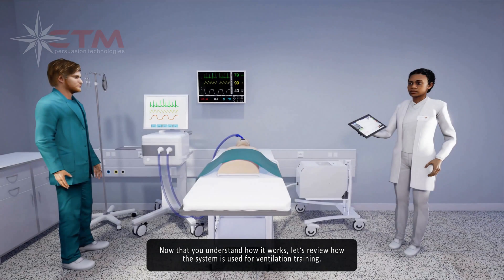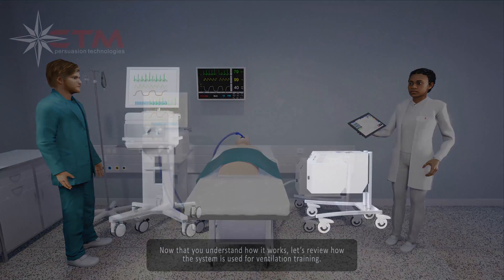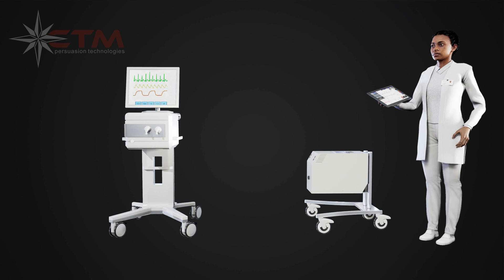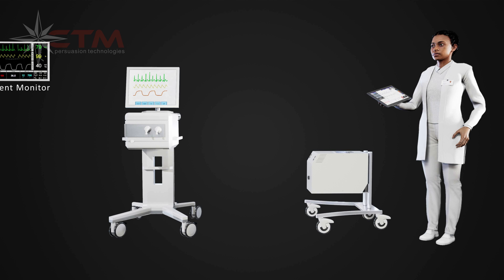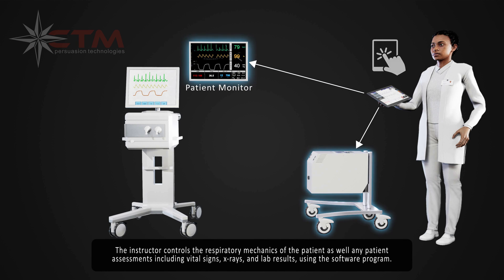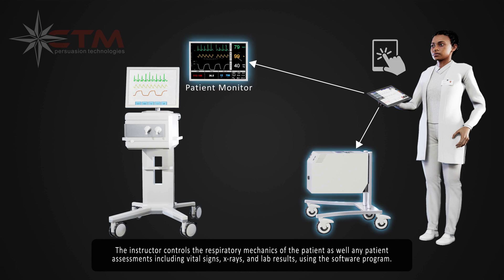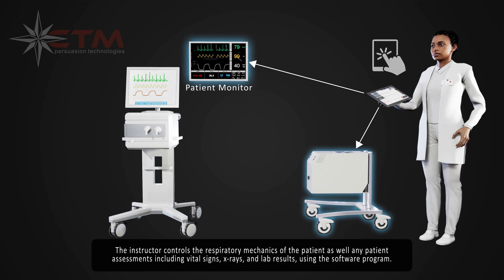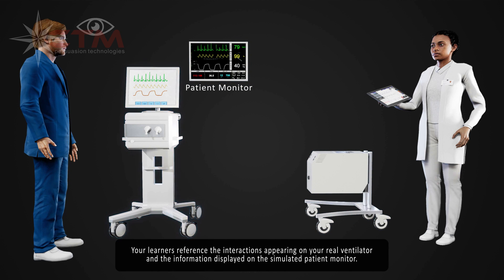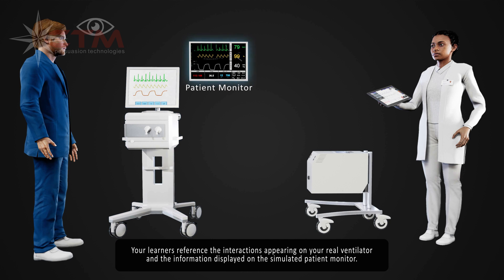Now that you understand how it works, let's review how the system is used for ventilation training. The instructor controls the respiratory mechanics of the patient as well as any patient assessments, including vital signs, x-rays, and lab results using the software program. Your learners reference the interactions appearing on your real ventilator and the information displayed on the simulated patient monitor.